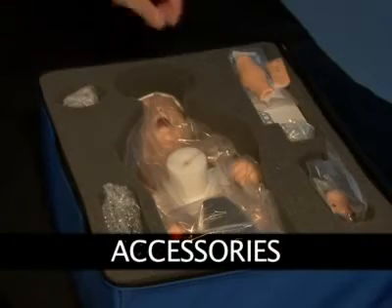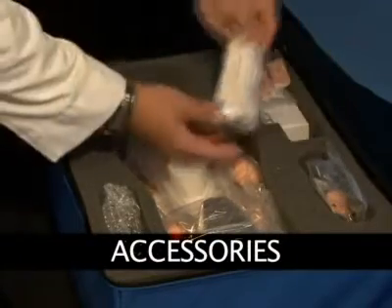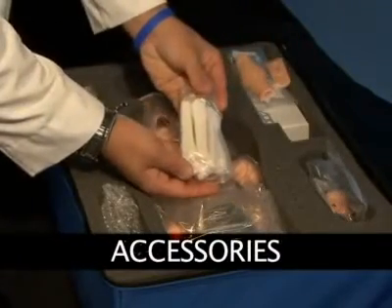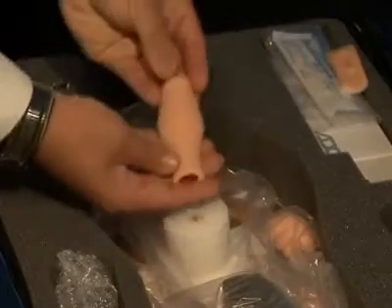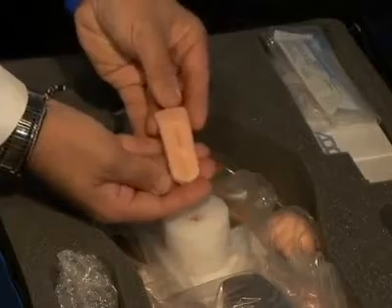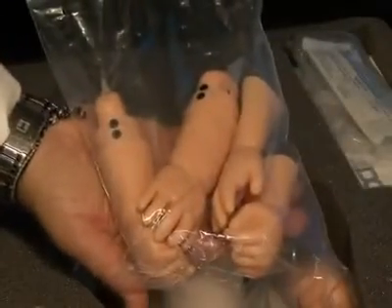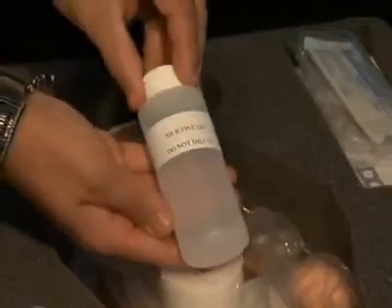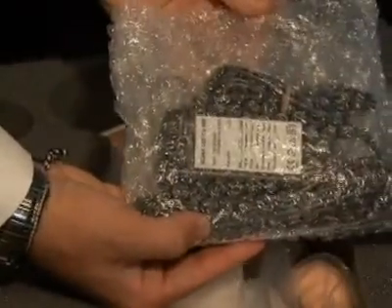Located in the newborn mannequin case you will find several accessories such as replaceable leg bones, a tibia bone skin, a set of interchangeable genitalia, a blood pressure cuff, replaceable arms, silicone oil and a battery charger.